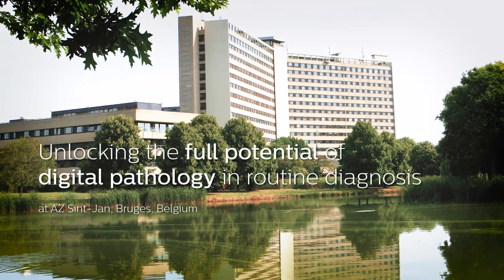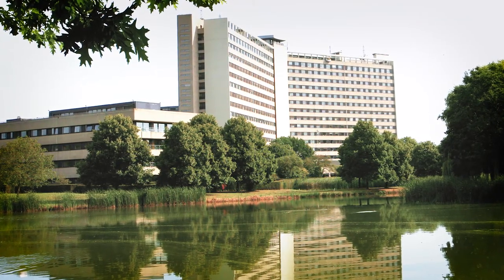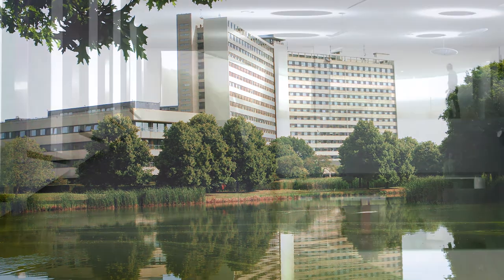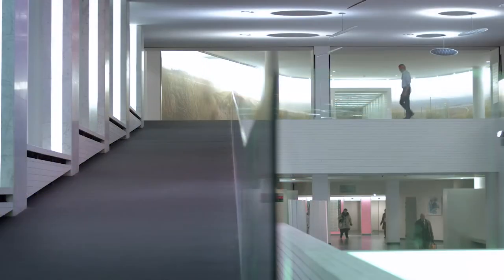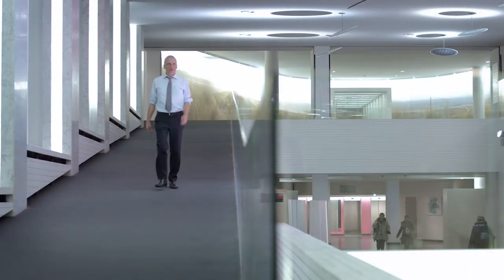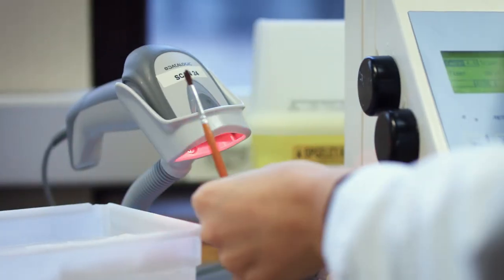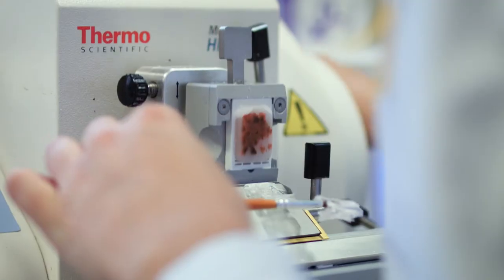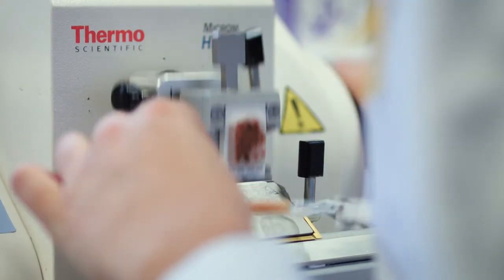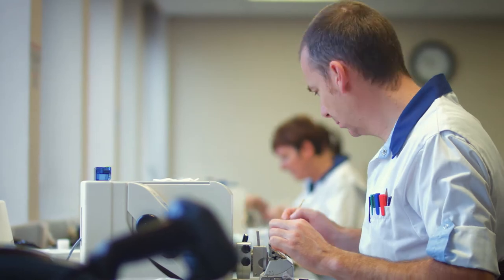The St. Jan Hospital has around 1,000 beds, which generate around 17,500 pathology cases a year and around 80,000 slides a year.